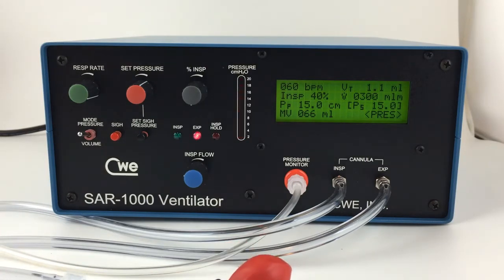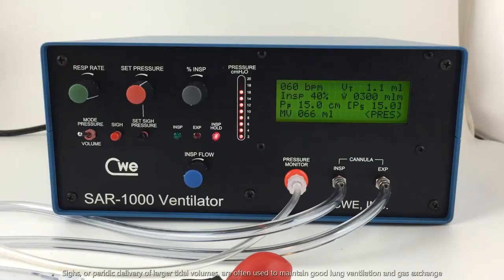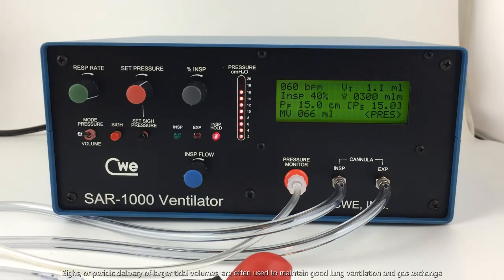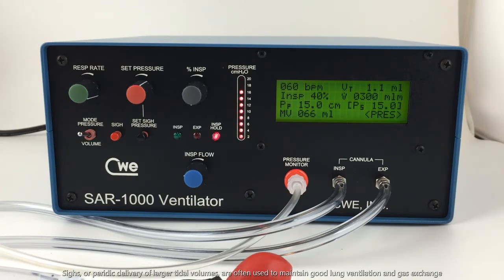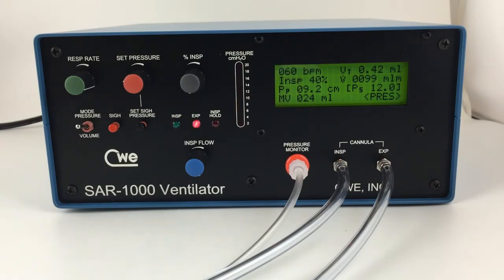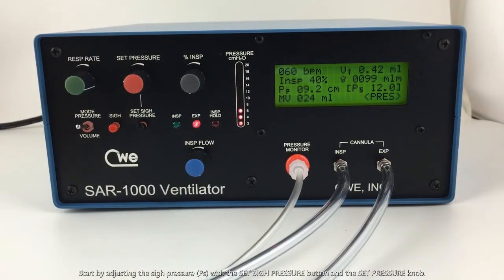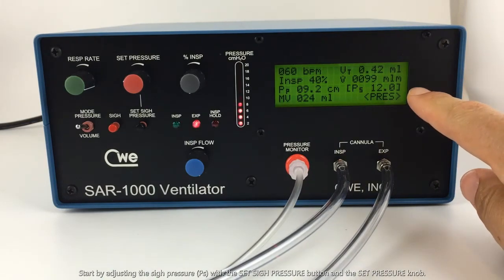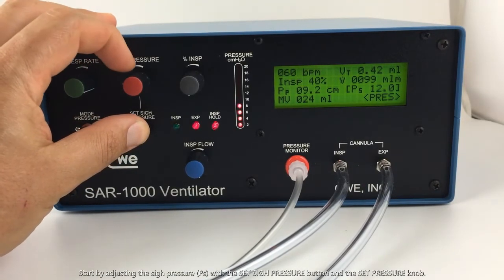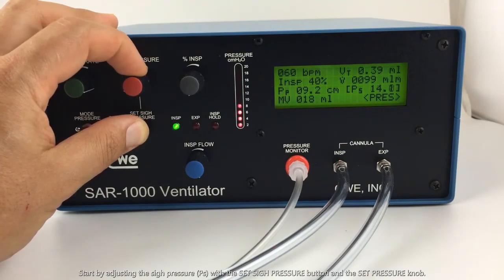Finally, let's go over the sigh feature. Sighs, or periodic delivery of a larger tidal volume, are often used to maintain good lung ventilation and gas exchange. The first thing to determine when using the sigh feature is the sigh pressure. Here we can see the pressure that we have set for inspiration, and on this side is the sigh pressure. To adjust sigh pressure, we press the sigh pressure button and turn the set pressure. As we can see, the sigh pressure is increasing.